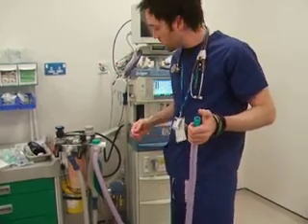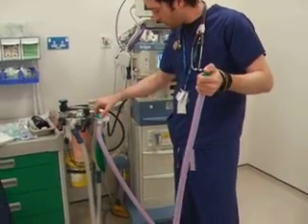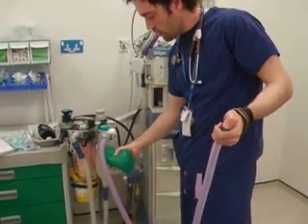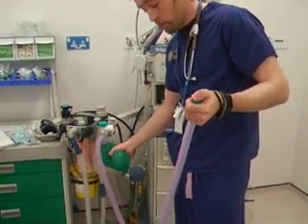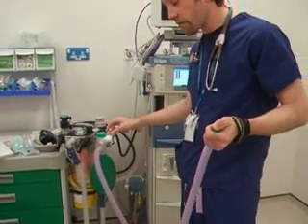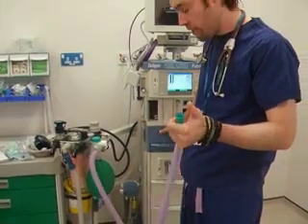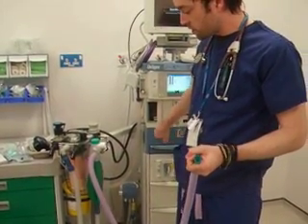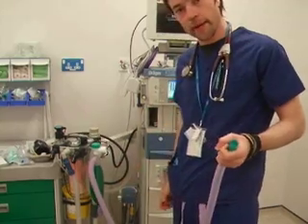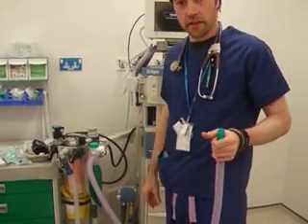Then I'm going to check the outer tubing by occluding it with my thumb, waiting for the reservoir bag to fill up, and then squeezing to make sure I get some good pressure. Then with the reservoir bag filled, I release my thumb and perform an oxygen flush, which causes a venturi effect that deflates the bag. So after my tests, I'm happy that this circuit is safe to use.